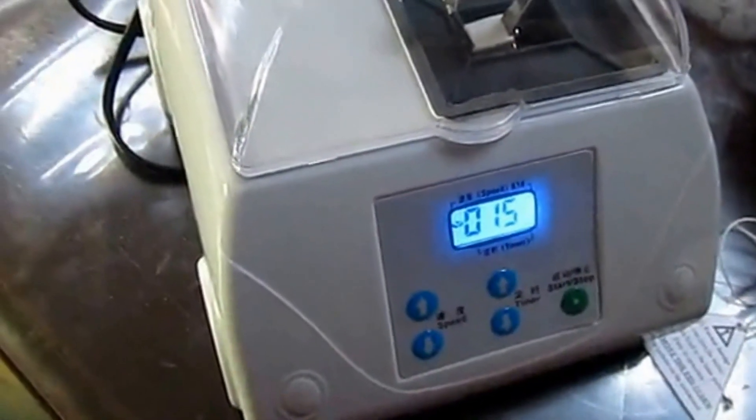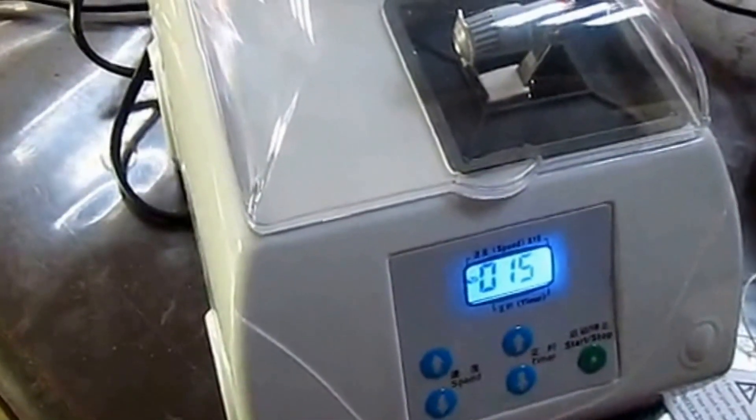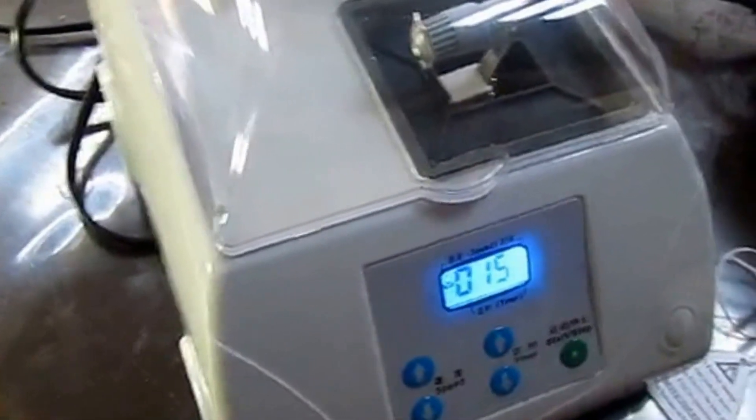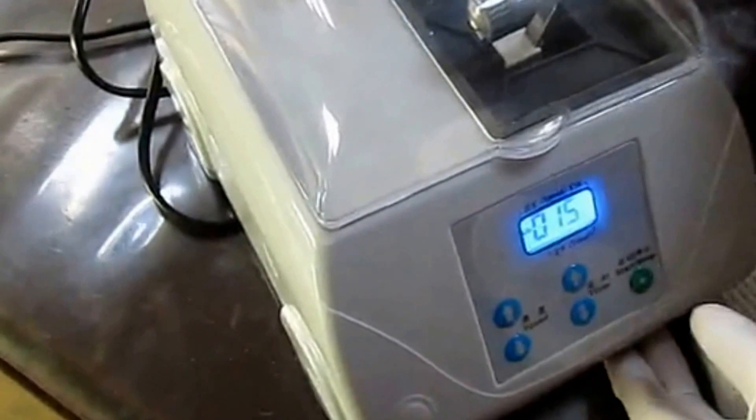If you press the start button and the device does not work, it's probably because the sensor for the mask has malfunctioned. The solution is as follows.